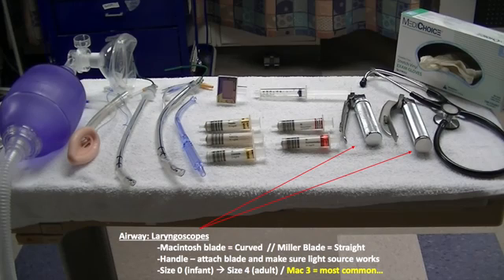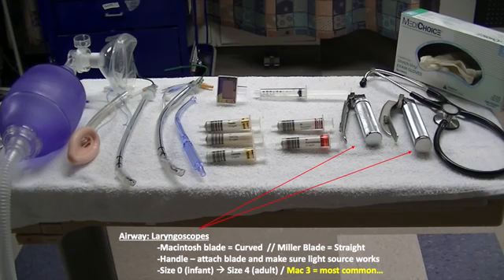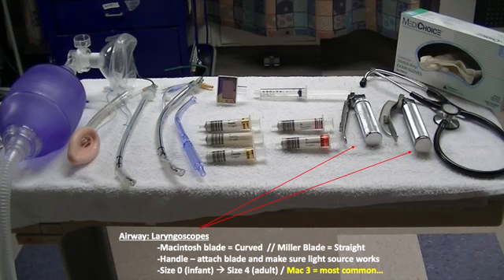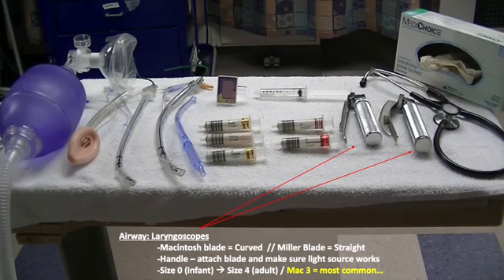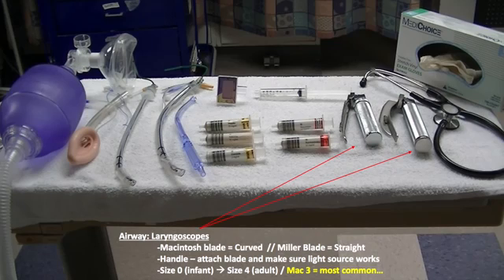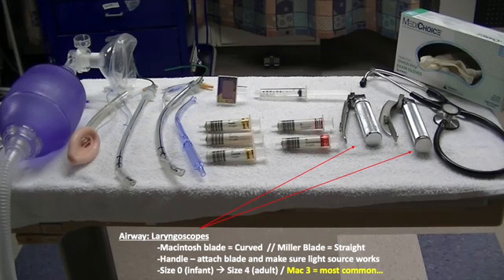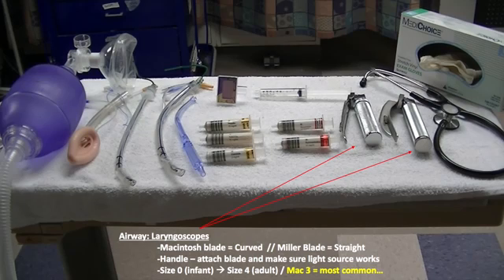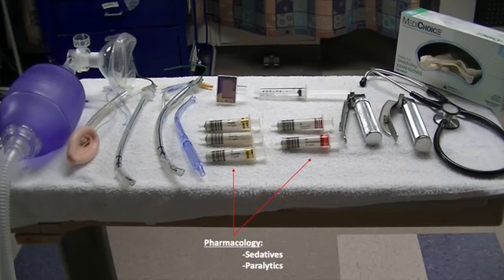Macintosh blades come in a variety of sizes. The most common is a size 3. Size 0 is for infants and size 4 is for larger adults. For most adult patients, a Macintosh 3 blade will likely allow you to adequately visualize the vocal cords.